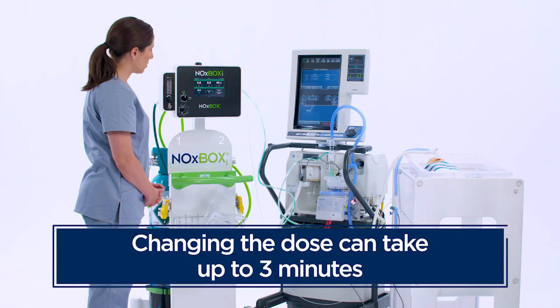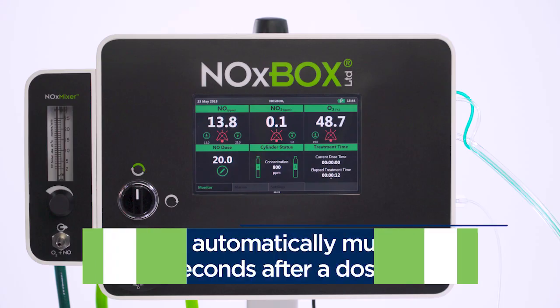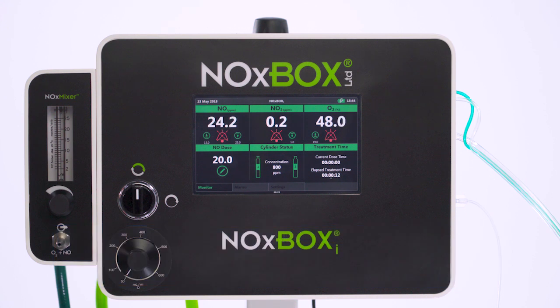Changing the dose can take up to 3 minutes, depending on ventilator flow rate. The less flow, the longer it takes the nitric oxide control system to settle to the selected dose. Note that alarms are automatically muted for the first 30 seconds after a dose change. Once stable, the NOxBOXi system will continue to deliver the selected concentration in sync with the ventilator inspiratory flow pattern.